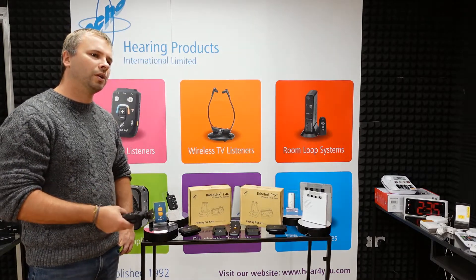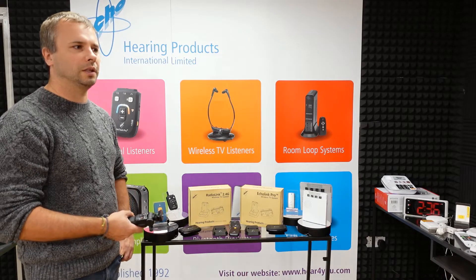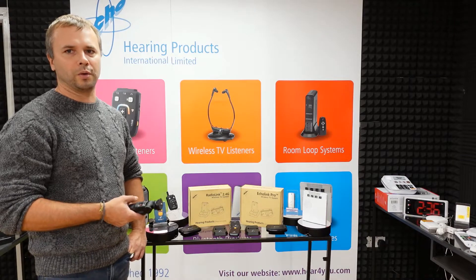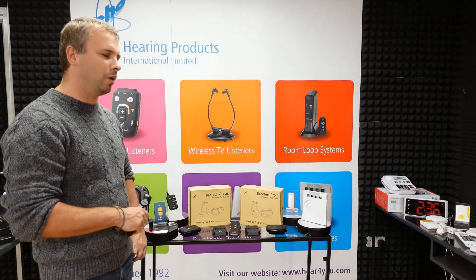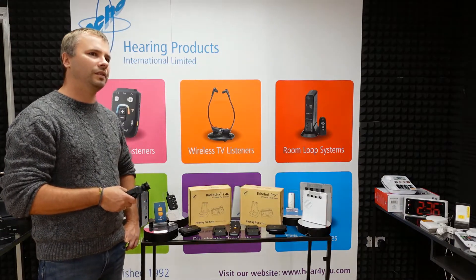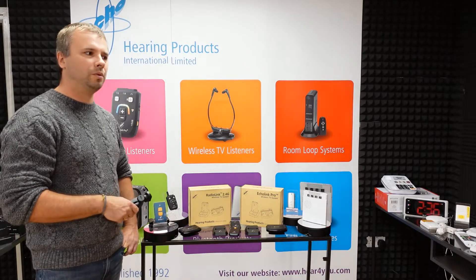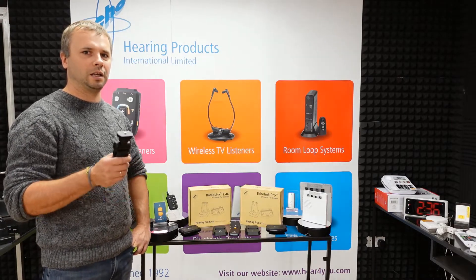This product should be connected to your TV. It can be connected through analog — so if you have an old-style TV, you can use old SCART connectors, the headphone socket, or phono outputs. Remember you need an output on your TV — don't mix it with input because input won't give you any signal. It's also compatible with the latest smart TVs because we provide optical cables with the set, so you can connect Echolink Pro to your modern smart TV using the optical output.